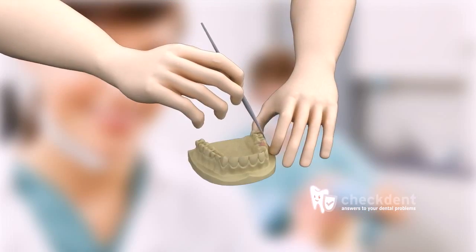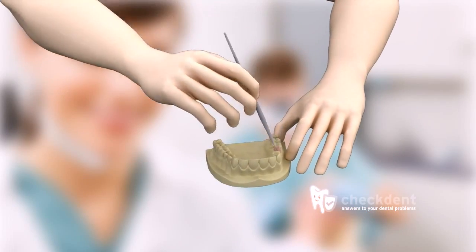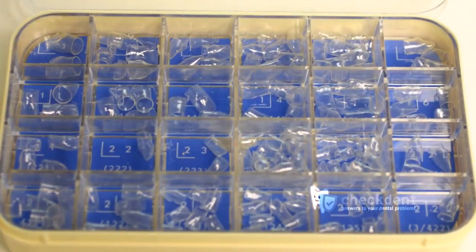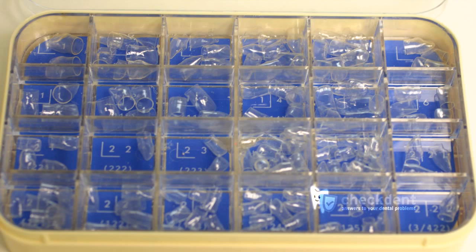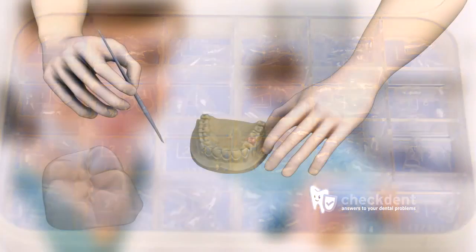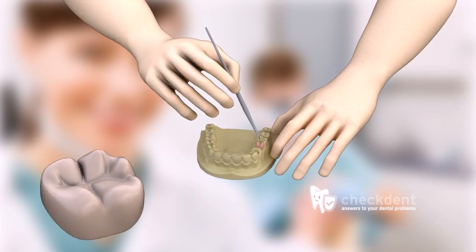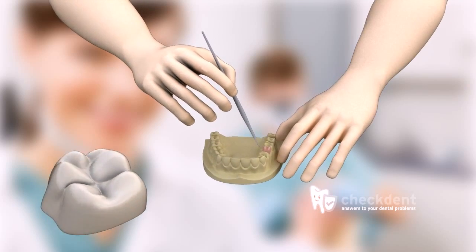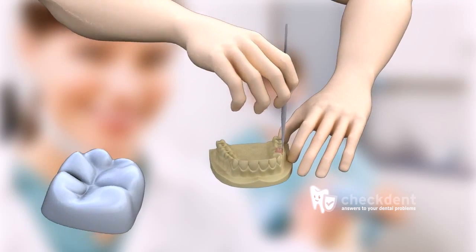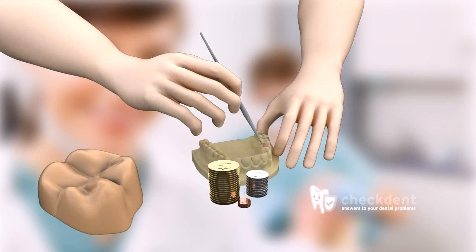Not every technician can master this technique — recreating a beautiful crown is an art. The crowns in the other picture have been made out of a prefabricated shell and painted according to the color indicated by the dentist; the technician never saw the patient. This is quick and less time consuming, and so costs less money.